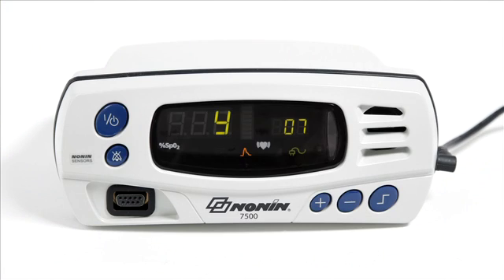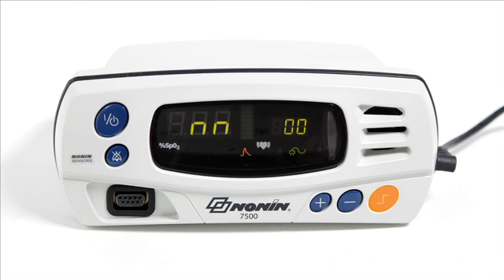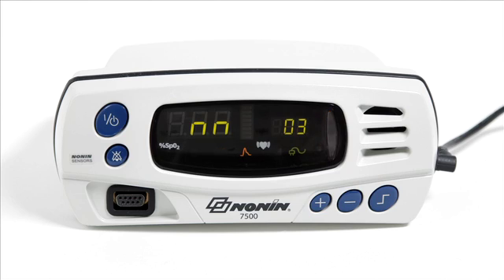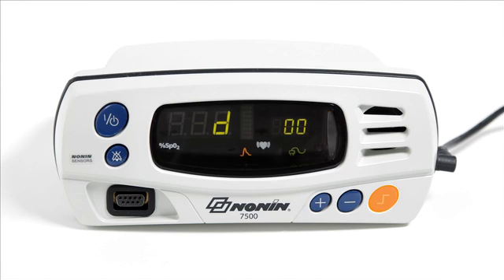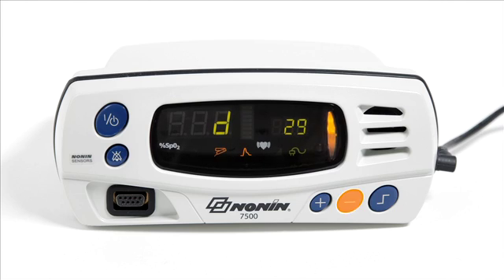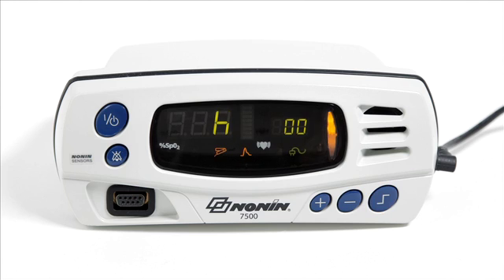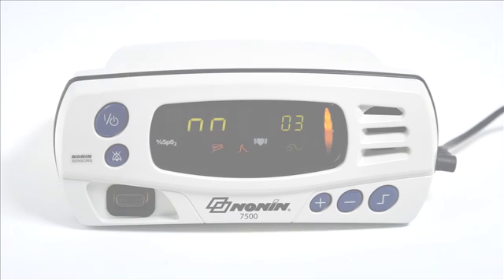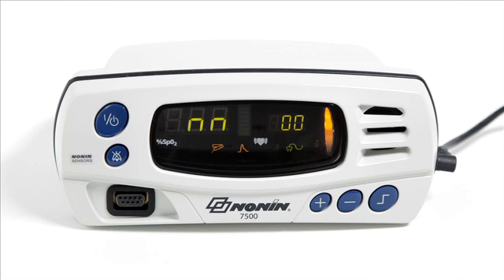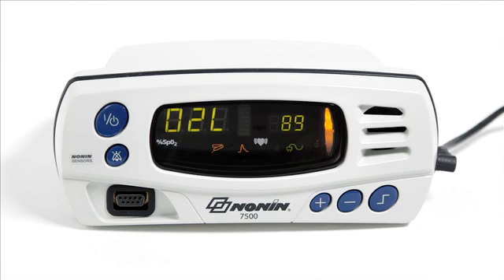You can retain the present date and time setting by advancing with the limits button, or reset with the plus and minus keys and then confirming with the limits button. Each limits button press advances to the next screen. You can disable the date and clock settings by setting the month to 00; if you confirm that setting, you will immediately exit setup mode.